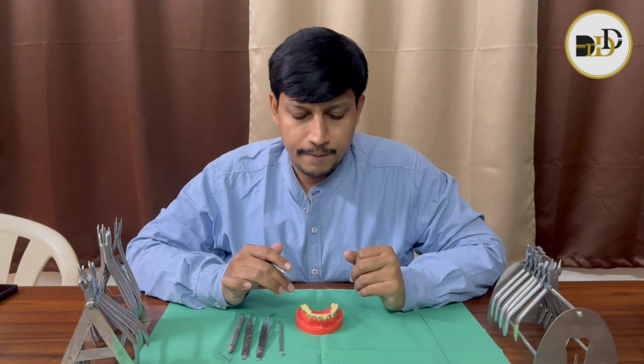Hello everyone. Today I am going to explain the basic instruments which will be useful for regular lingual practice.